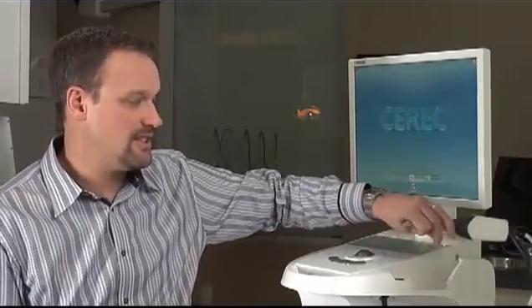What I like about the Omnicam is the size of it. It is quite small and you can get it around in the mouth very easily. Now it's important to know how to actually hold it.